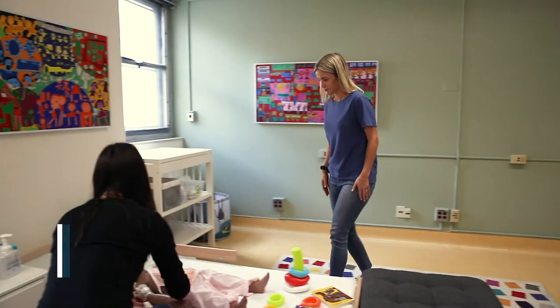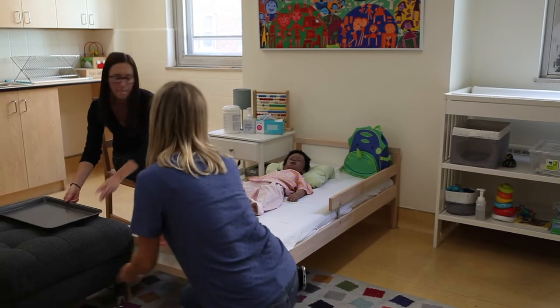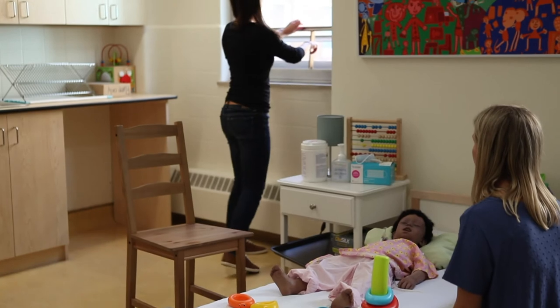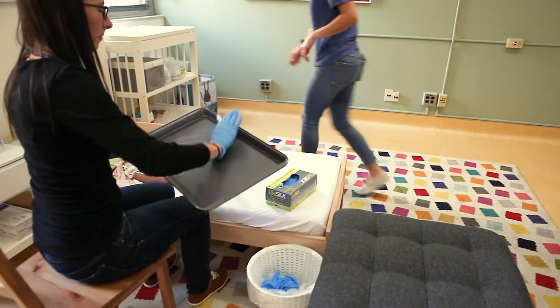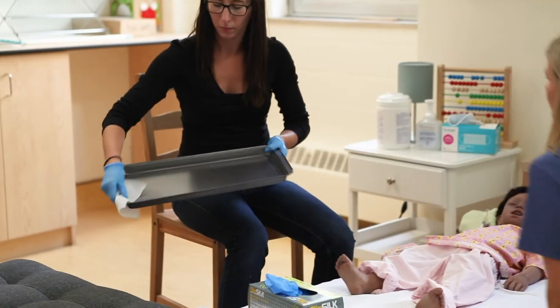Please see the introduction video on preparing your environment before watching this video. First, locate an area to perform the procedure with a support person who will help you. Find a quiet space and remove any pets or other children. Limit the number of people in the room, reduce air drafts by closing windows and doors and turning off fans, remove any clutter, and place garbage and hand sanitizer within reach. Find a stable, wipeable work surface to use as your general aseptic field, such as an unused dedicated cookie sheet. Clean the work surface with a disinfectant wipe and allow it to dry.